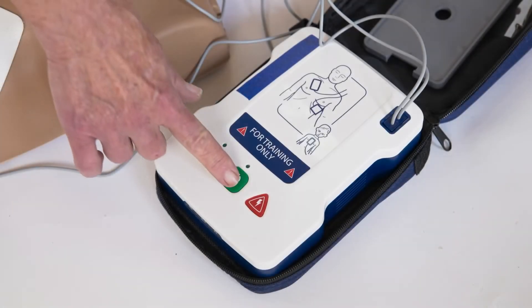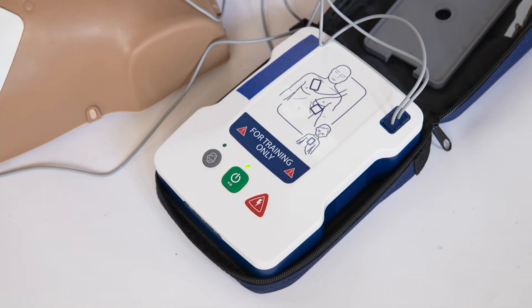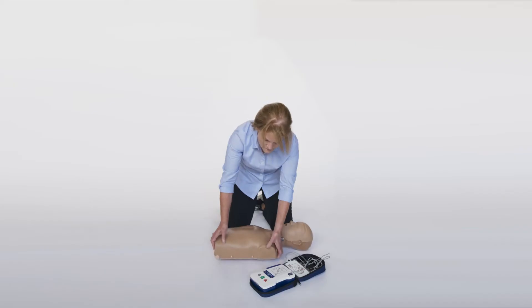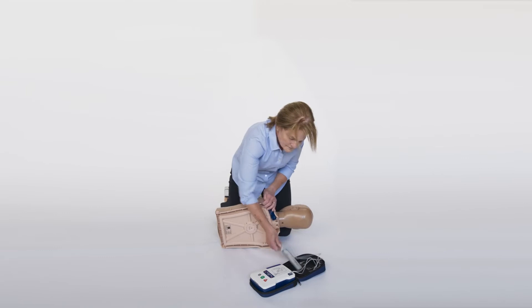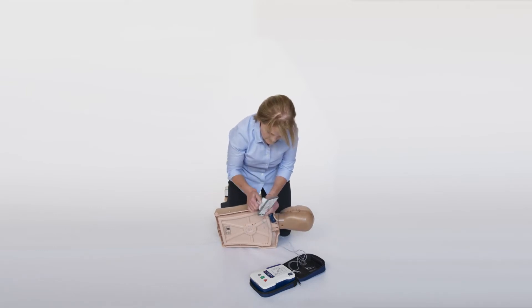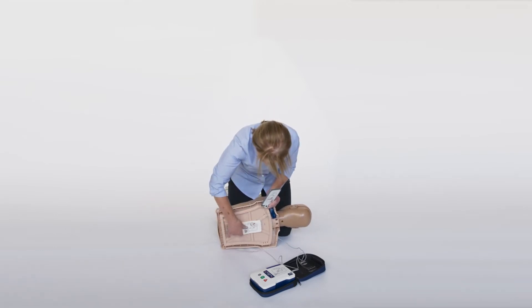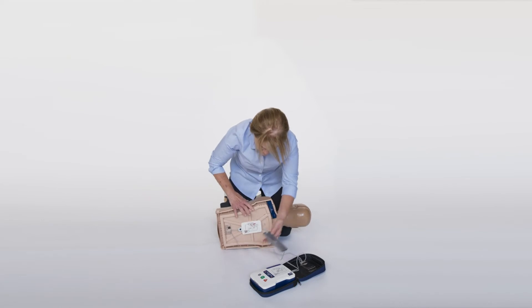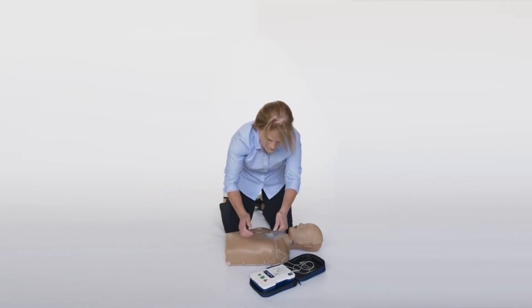To use an AED on a child, first turn on the AED. Then place the pads as instructed for a child. Typical pad placement is either front and side or front and back. Follow the instructions provided by the AED.